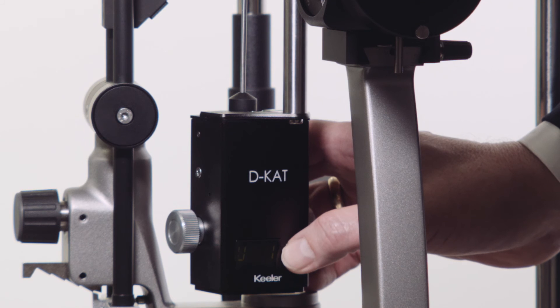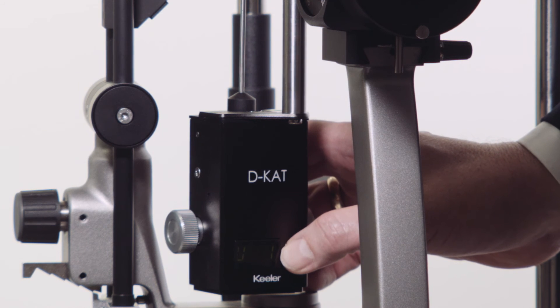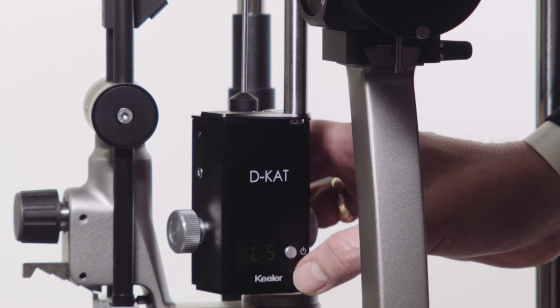Once volume is displayed, press and hold function for three seconds to enter the display brightness setting. Press function to toggle between brightness settings.